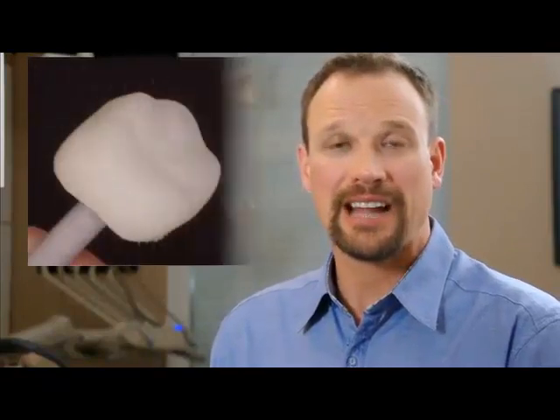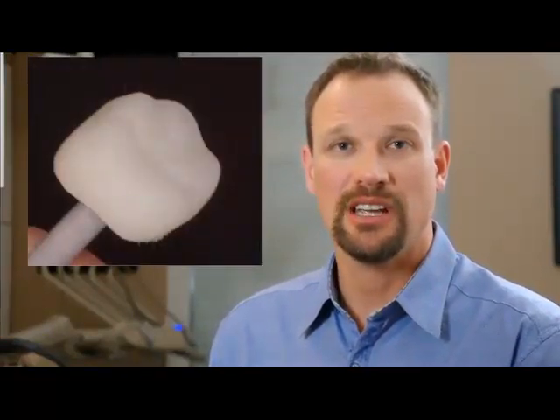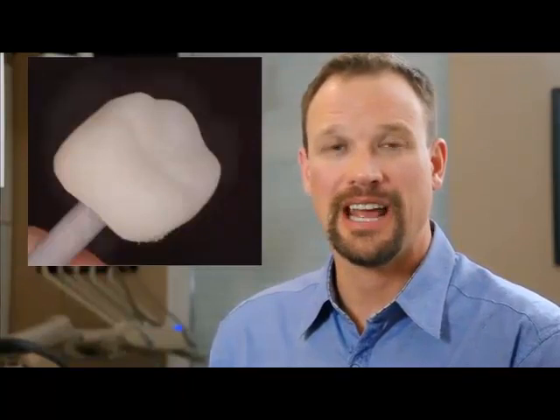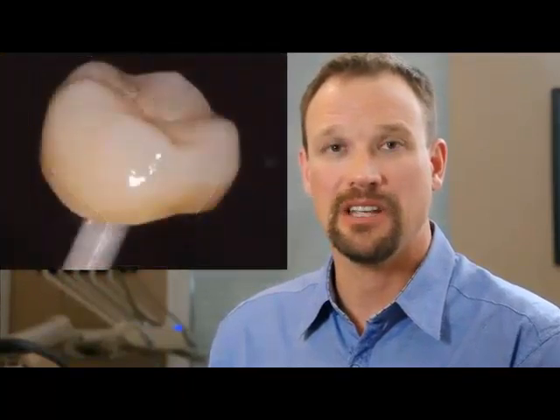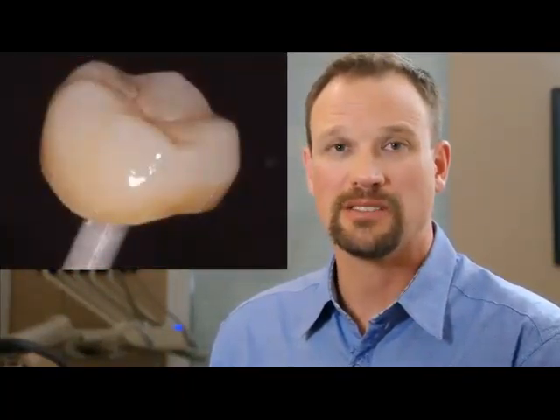So the goal of this hour is to take something that is lacking depth — much like this restoration — and turn it into something that has depth in a few very simple, easy steps. We don't want to make this into rocket science or something that's going to get us behind. We want to be able to do this quickly and efficiently.